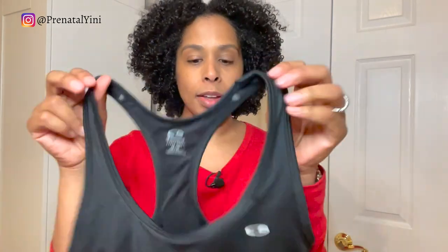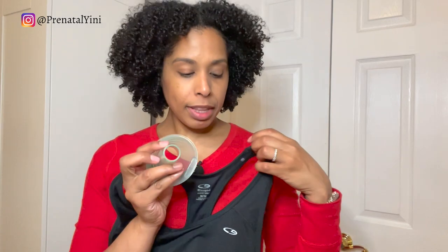The fifth hack is using a regular sports bra. Put it on, mark where your nipples are, take it off, and make an opening. Keep in mind this material is less stretchy than cotton, so make sure the hole you make is large enough to fit your flange.